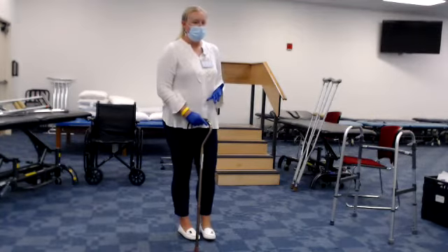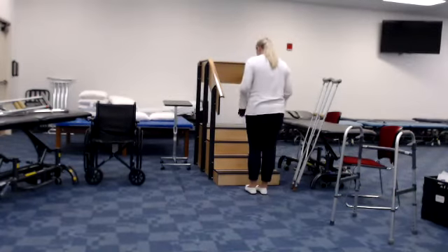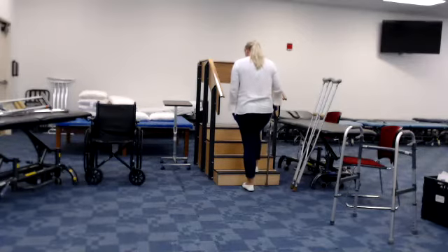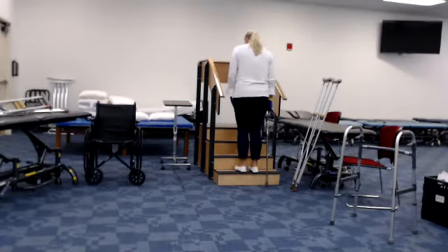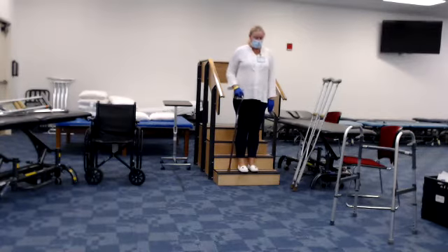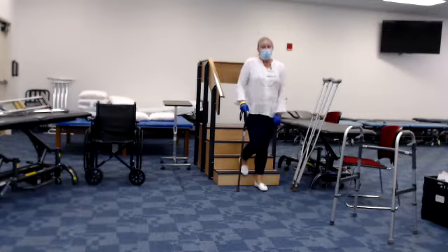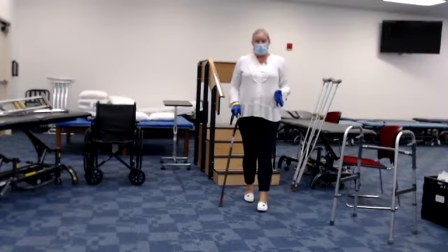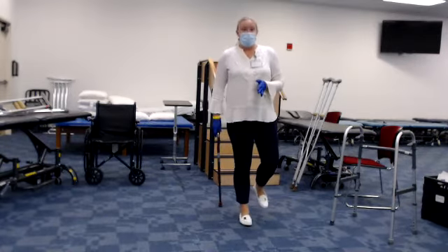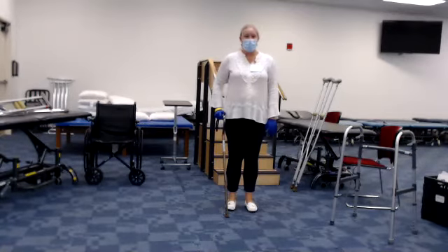Let me demonstrate those patterns before we get to the railing. Using the GAS acronym with a left-sided knee pain: Good would be my right leg, Affected would be the left side, and Sticks would be my device. For SAG going down, that same scenario would be device, then affected, then good or unaffected. Your unaffected leg is doing all the work — stepping you up and controlling the lower down, so those concentric and eccentric contractions of the unaffected extremity are working to support you.